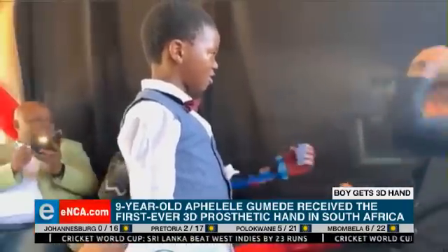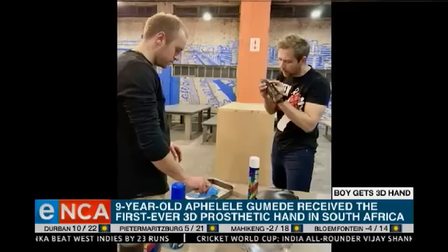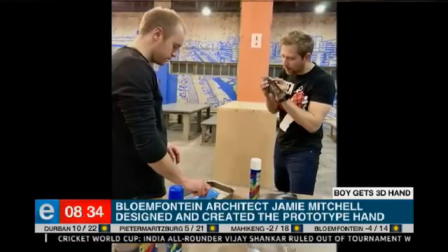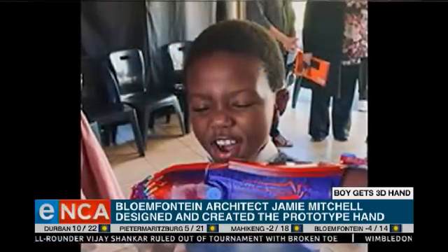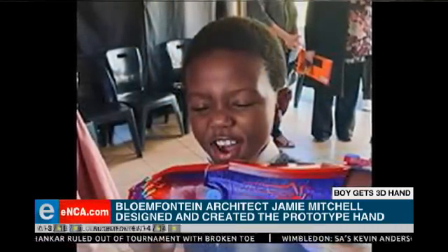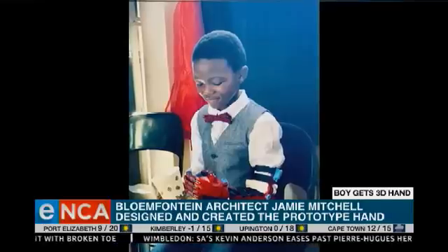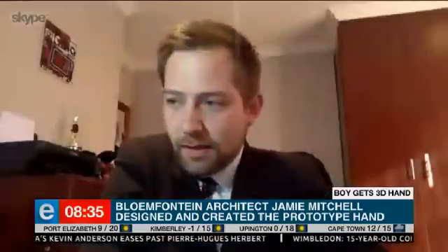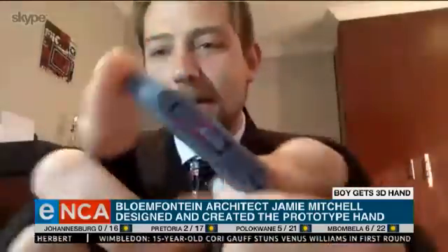We understand that he was born without a left hand. So tell us how you got involved. What was the process of creating this 3D printed prosthetic hand and how long did it take? So after I partnered up with Deloitte UK and Enabling the Future — the guys who started the entire project worldwide — I got a few of their designs and started doing test prints to see how the fingers work, how the rubber bands and everything fit together.